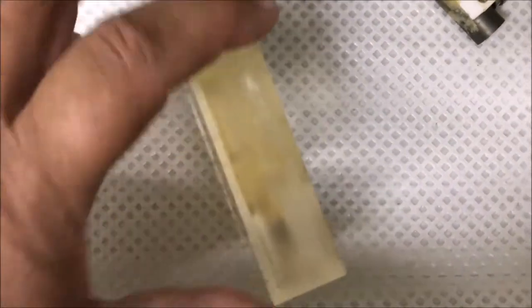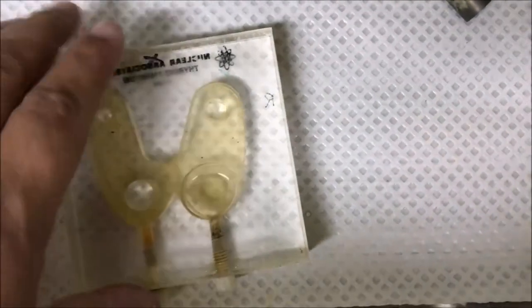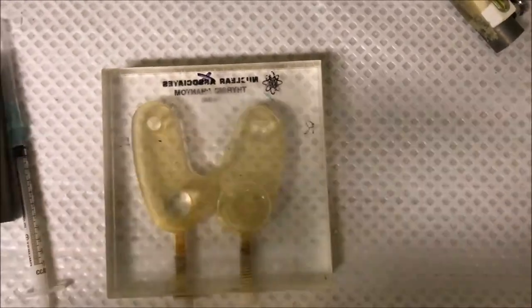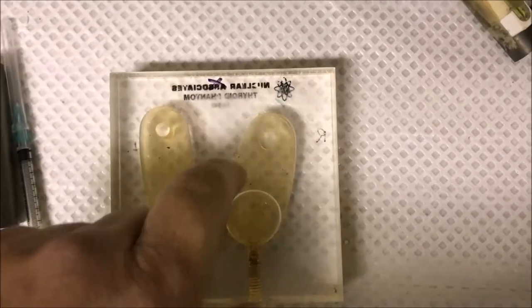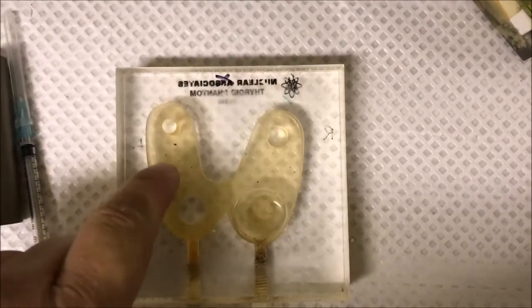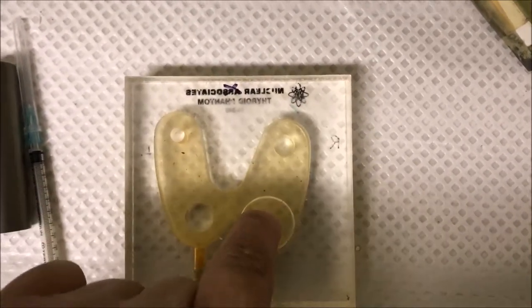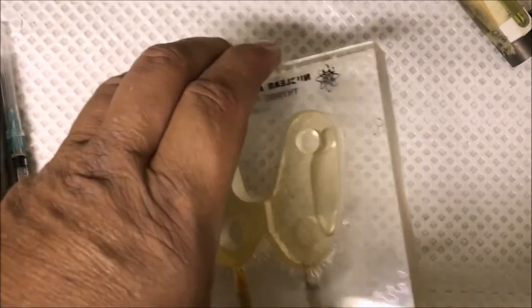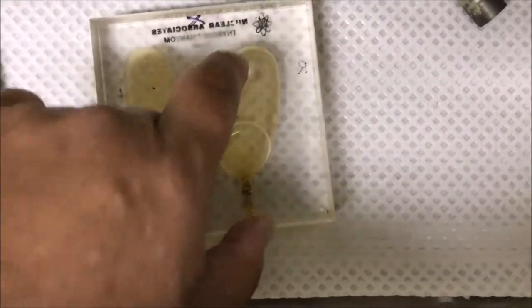You can see that it's dug out. So on this side of the phantom you can see when we flip it over that you'll end up with a bit of activity that fills it, creating a hot nodule. You'll end up with half the radiopharmaceutical concentration compared to the full thickness side — nothing where the cold nodules are — but where there's a hole that goes all the way through the full thickness, you'll end up with twice as much activity. So it creates one hot spot and three cold spots.